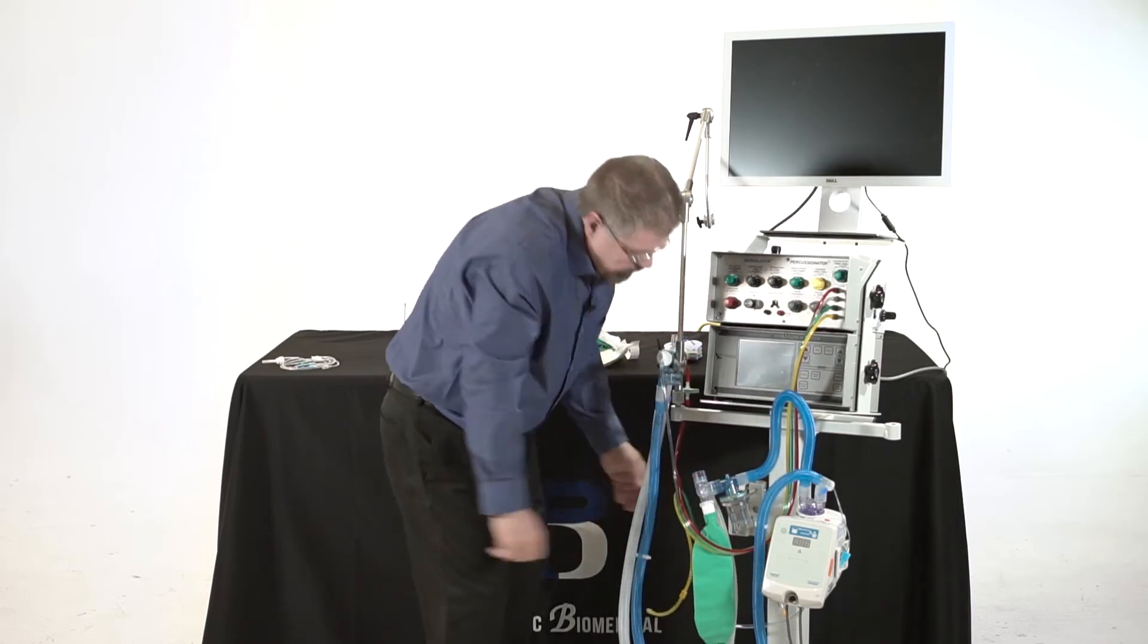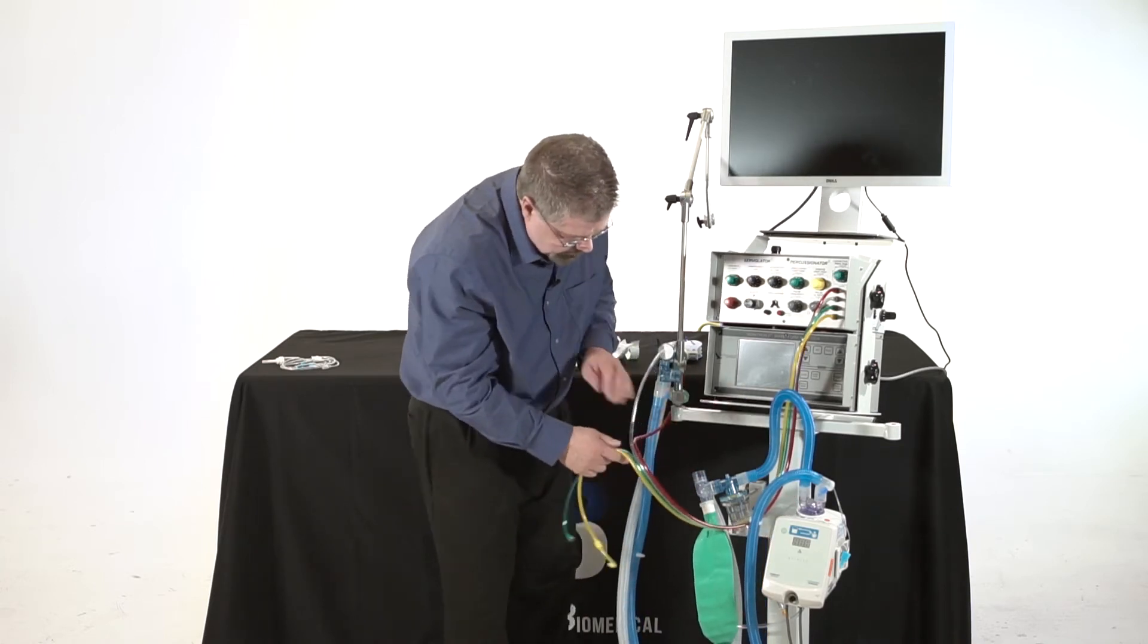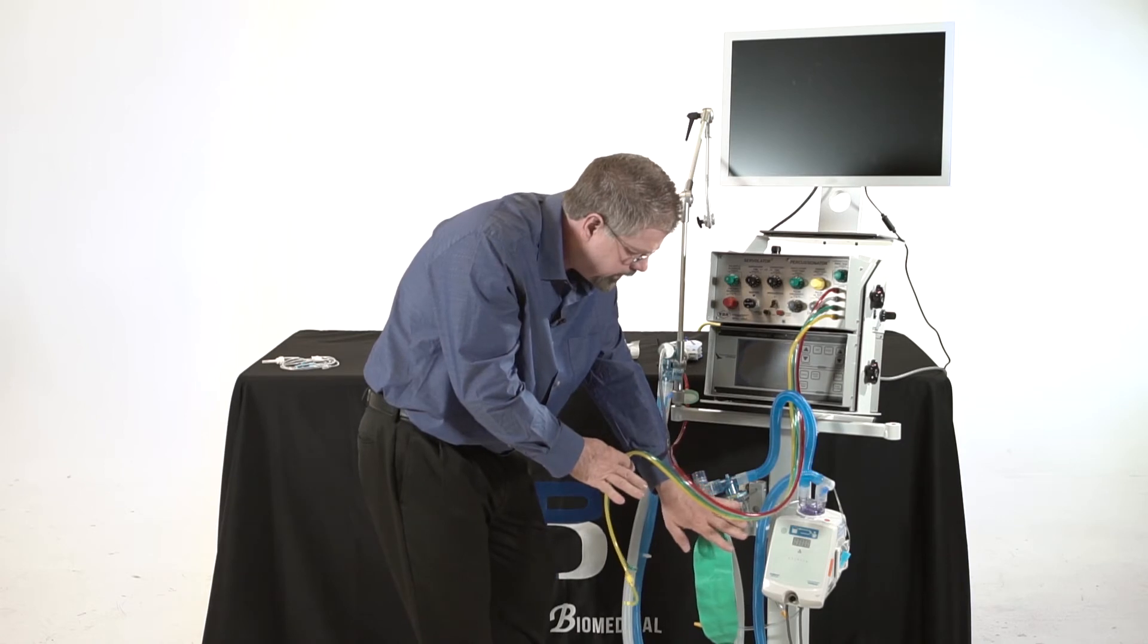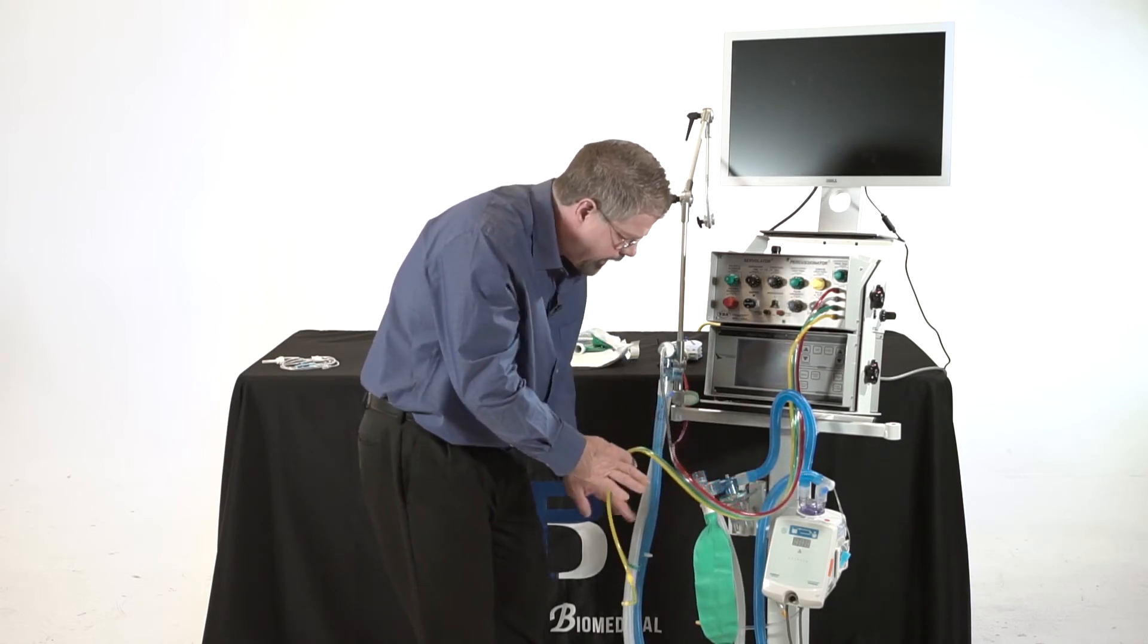Now I still have to hook the two tubing here to power this nebulizer, and this is nothing more than a nebulizer that's going to provide nebulized humidity going into humidifier to power this circuit.